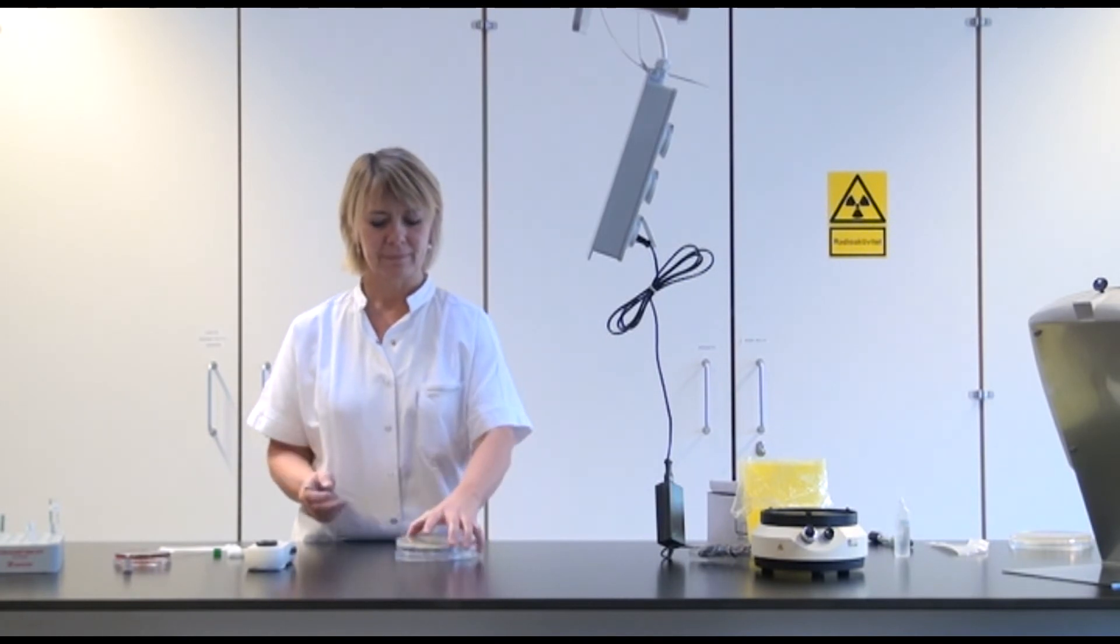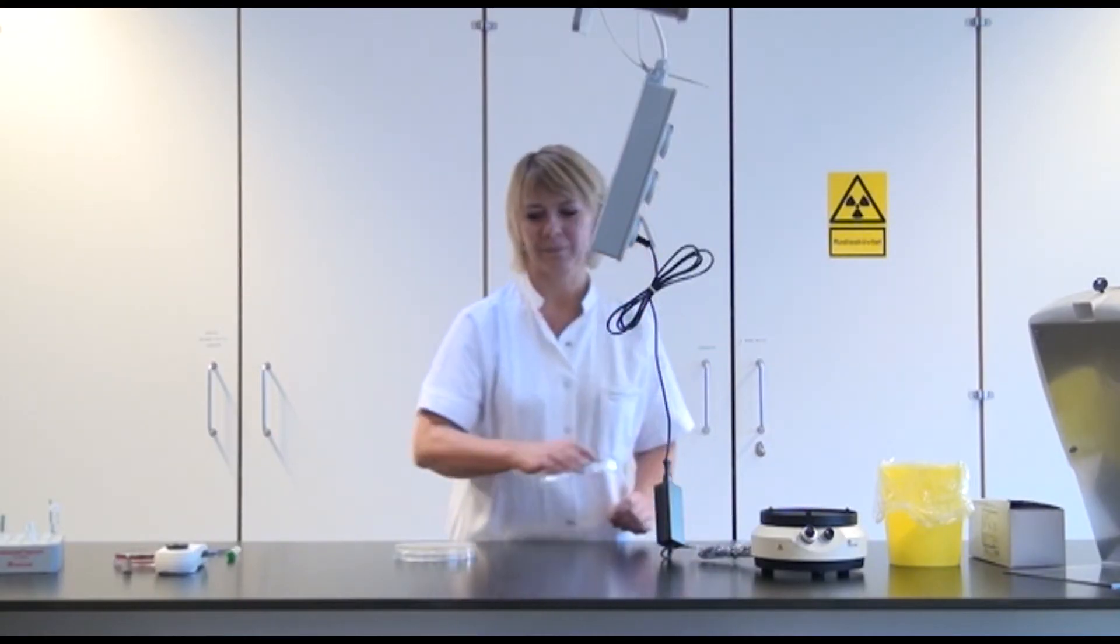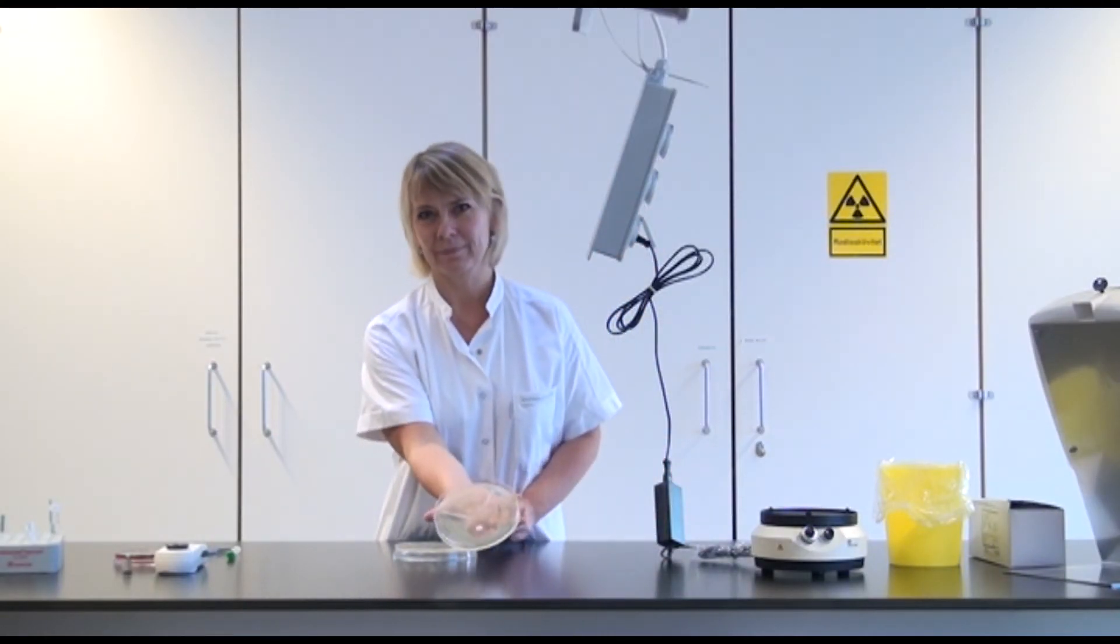The plate should be incubated at 36 degrees for 16-20 hours. We have cheated a bit and made one yesterday. Here you can see the result.